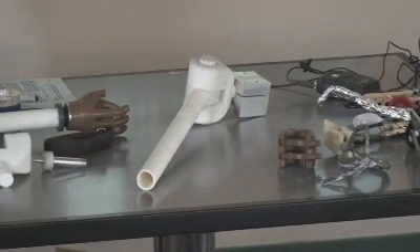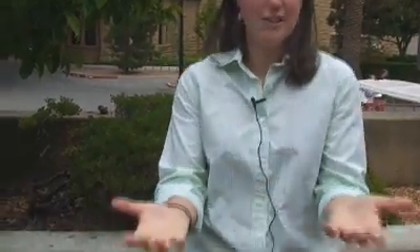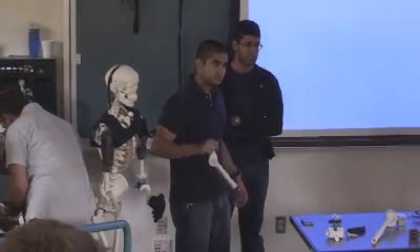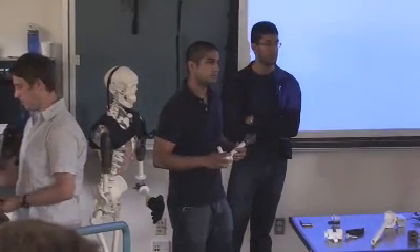It has a very aesthetic appeal. The button, if it's in a locked position — which you can do by clamping it against your body — a tooth goes into a middle section that's swinging. So if it's locked, you can hold something up, like if you were to carry a box in your arms. And in the unlocked position, if you push on the outside of the arm, it allows it to freely swing, which is important for them — to be able to wear a long-sleeved shirt and walk and have your arm act and appear as if you don't have any amputation.